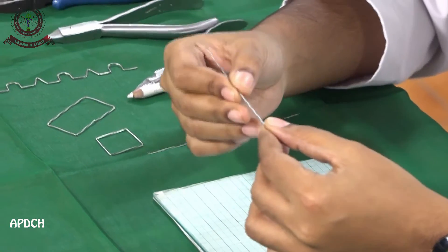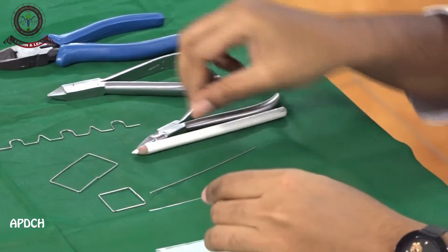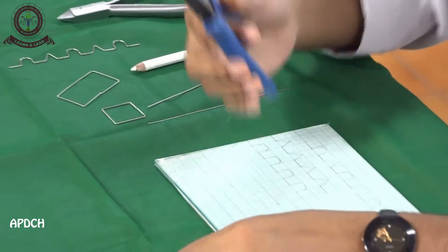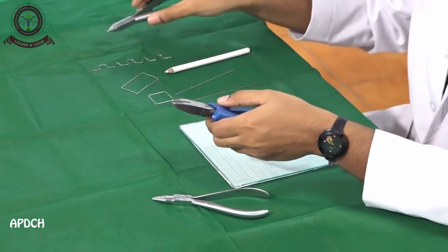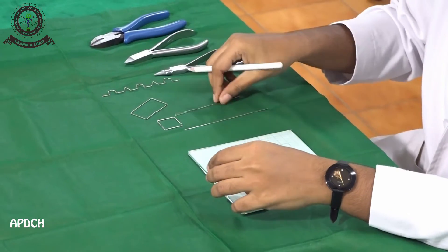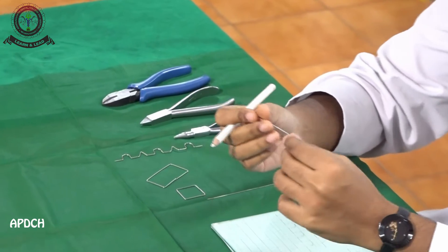Now we are going to see about how a square is made. We have to straighten the wire first. The instruments used are a universal plier and cutter, the Adams plier, and a glass marking pencil. We have to initially straighten the wire.